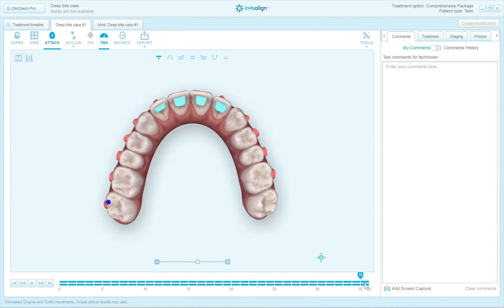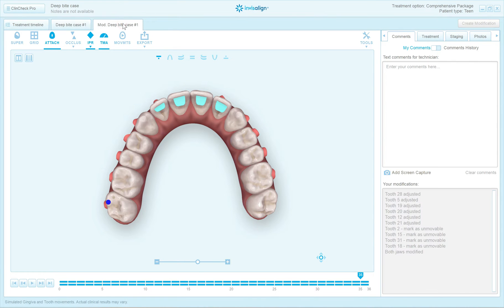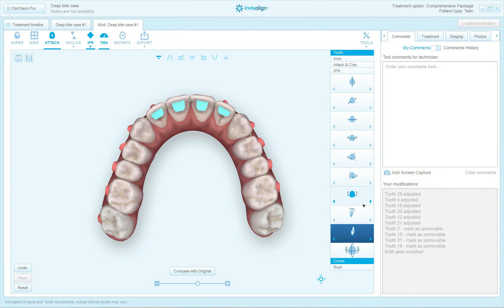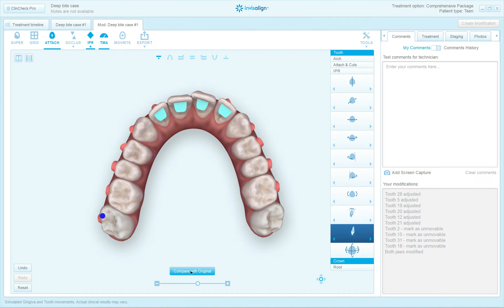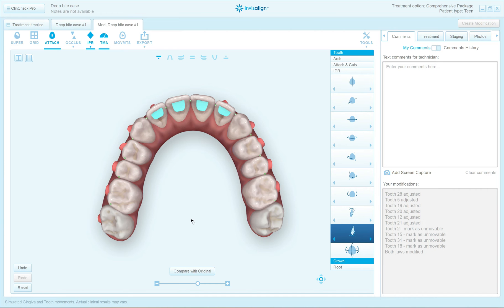Here's the beginning stage and here's the last stage. When you open up a sample case, it gives you the option right up here of creating a modification — I've already clicked it. When you click that, the 3D control bar appears right here. What I did in this particular case is I simplified posterior movements. See, the second molars aren't even moving; there's very little movement.